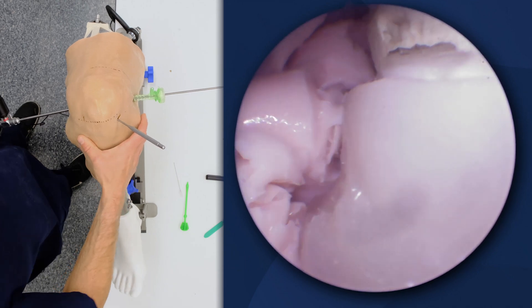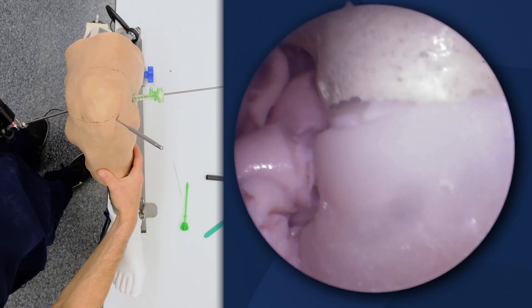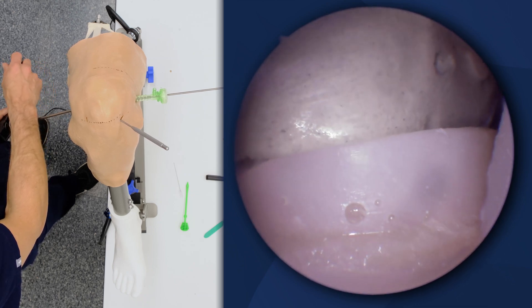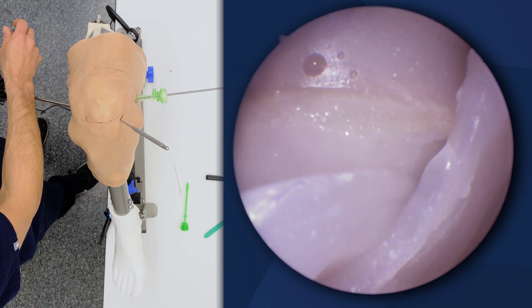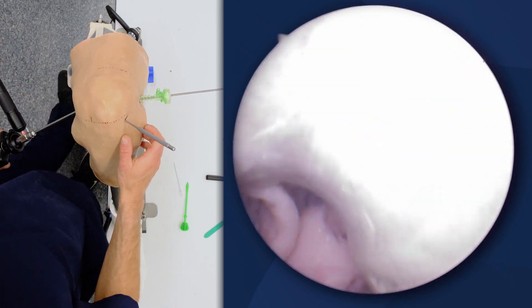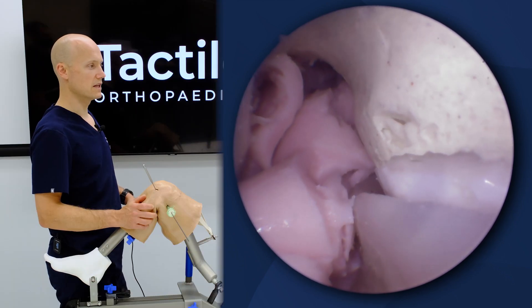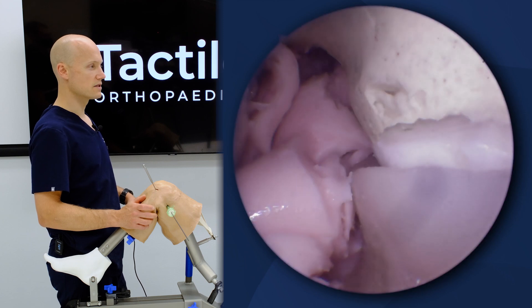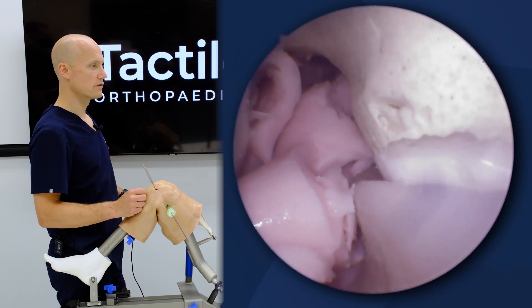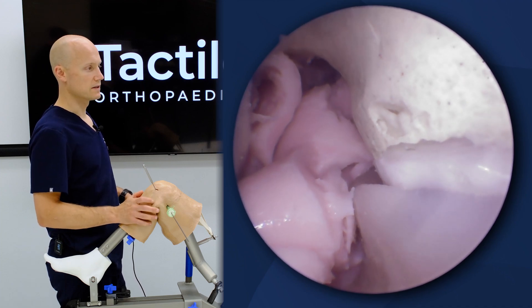That's showing the lateral compartment is a nicely well-reduced compartment — slight PCL insufficiency when we expose it, but it shows a relatively normalized environment. I can see the popliteus and how it comes through that septum. These are all key anatomic variables that have surgical relevance, and we've built this knee in an attempt to not over-design it — to keep costs down, but also to build something that provides a very good environment for anywhere from basic to advanced arthroscopic skill and technique practice.